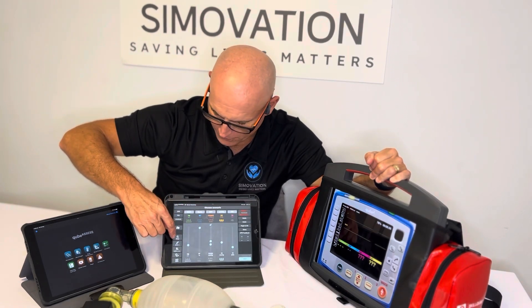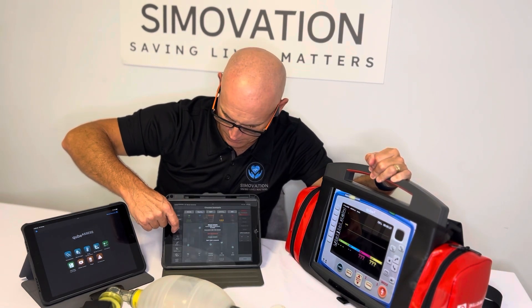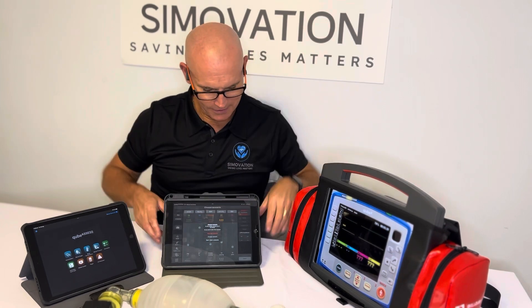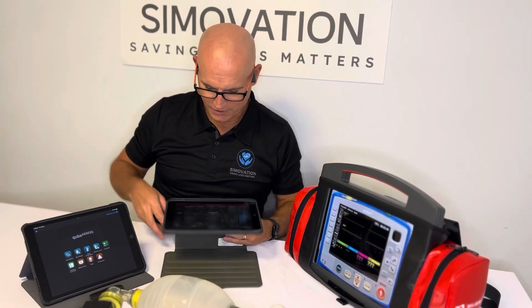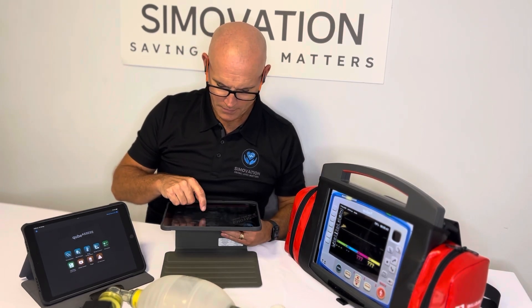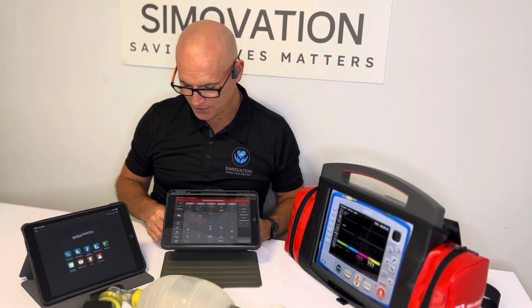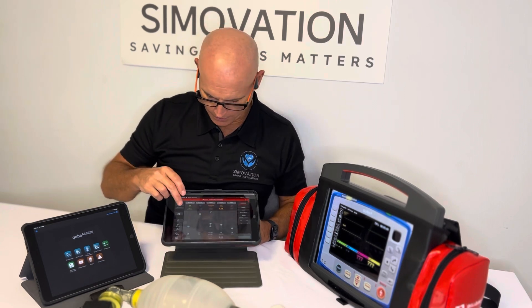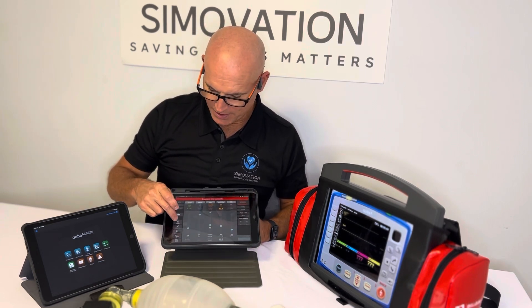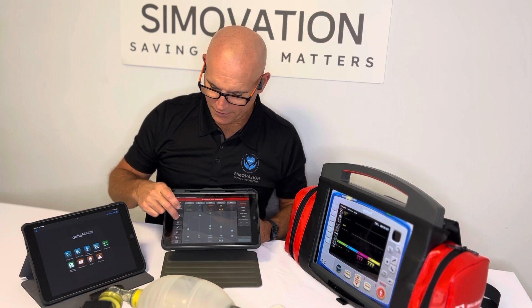If I go further down in terms of defibrillation pads, if you wanted to activate that, you can. I've just started a scenario effectively by pressing that button.